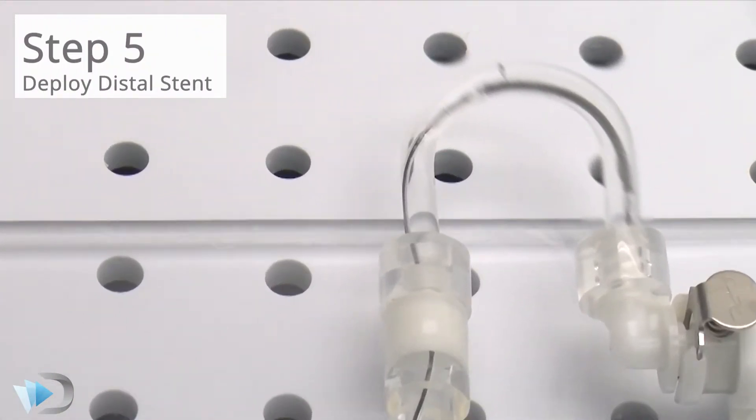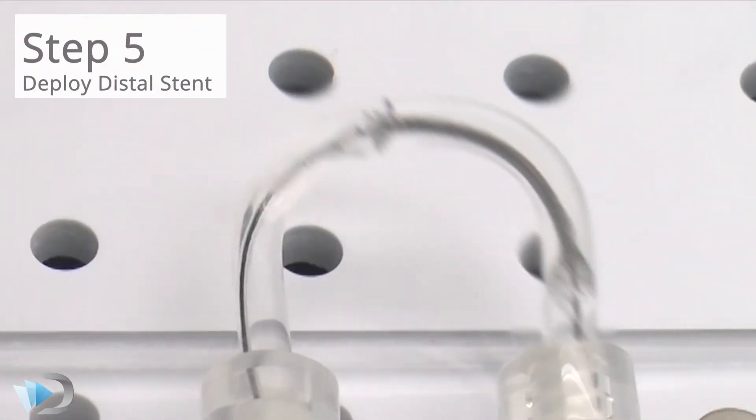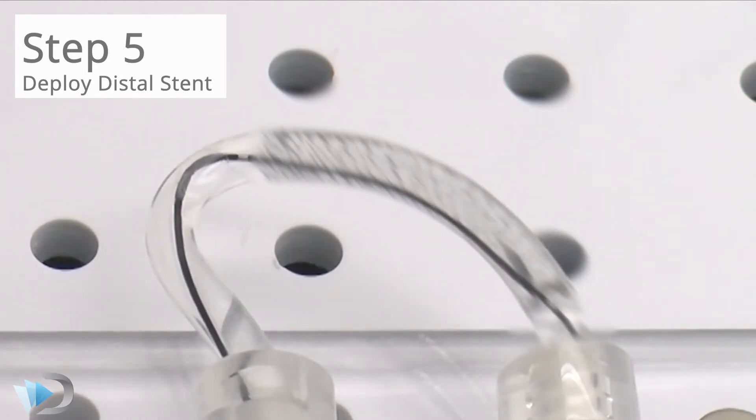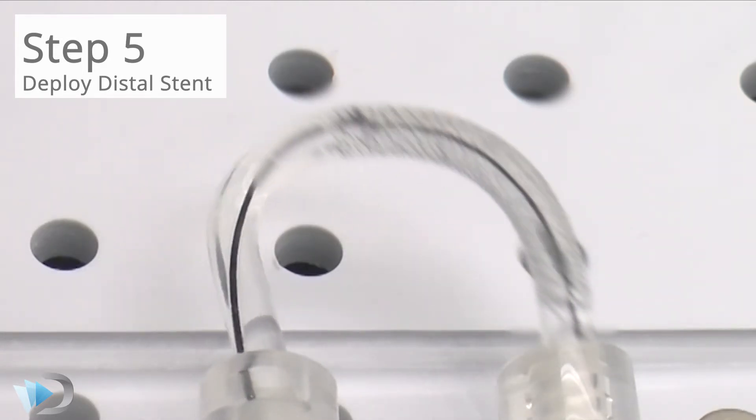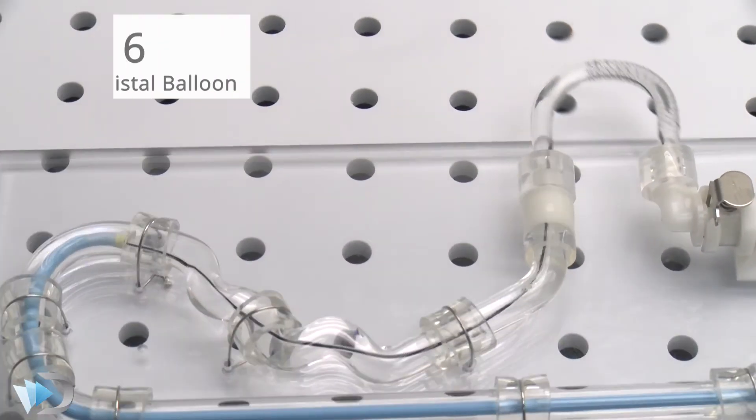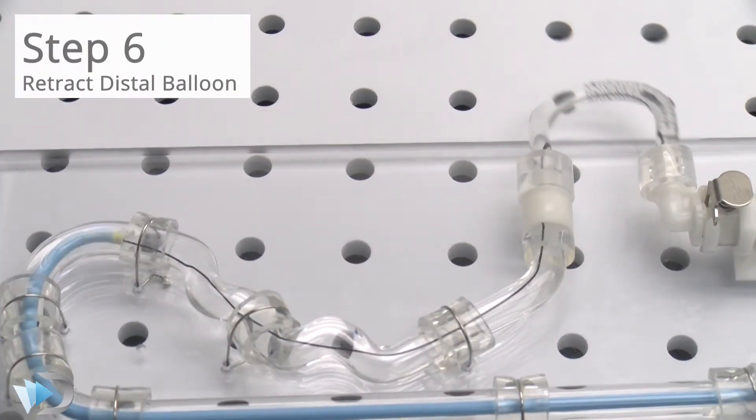The stent is expanded, and the balloon catheter is retracted from the system.